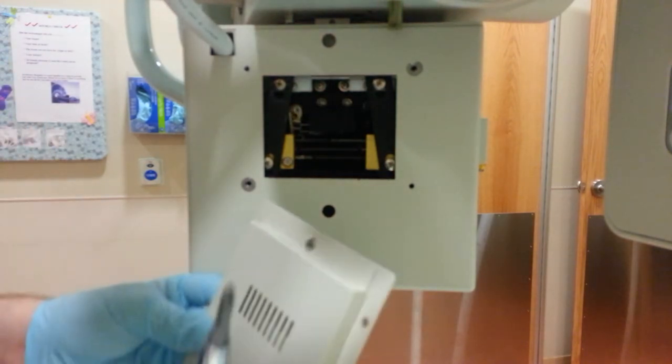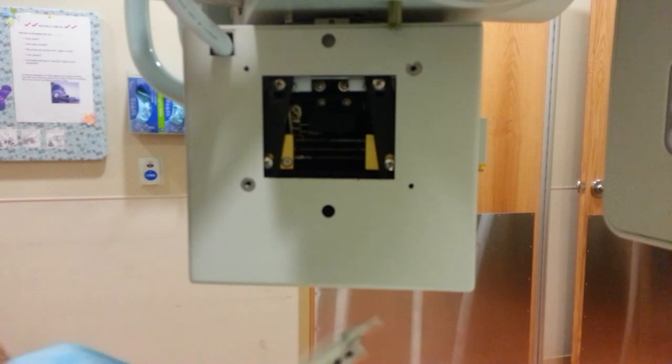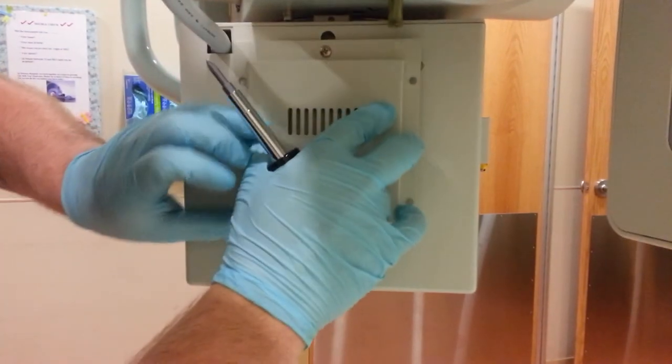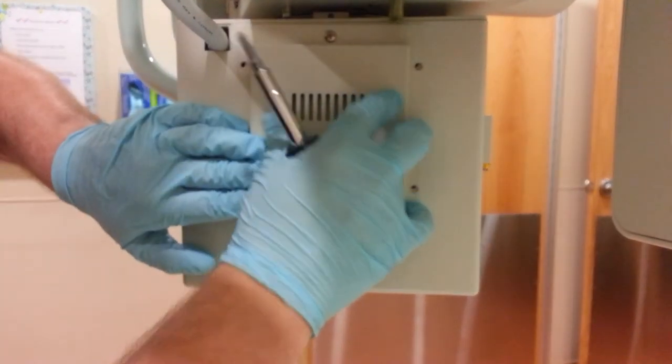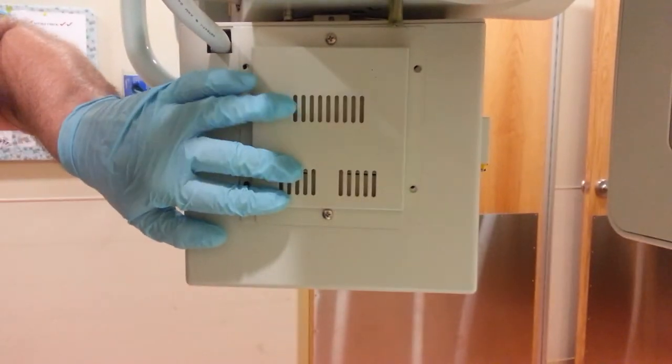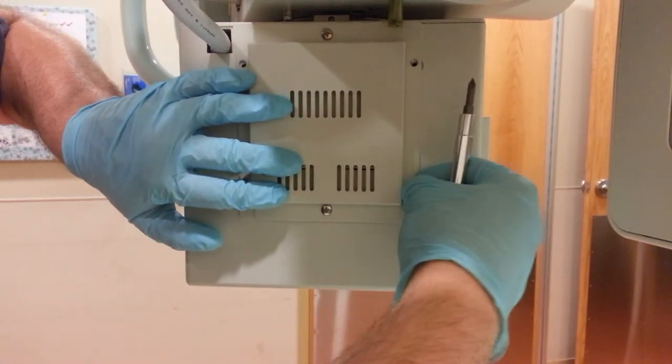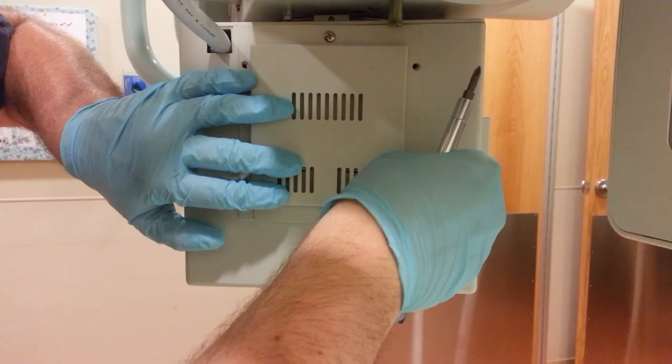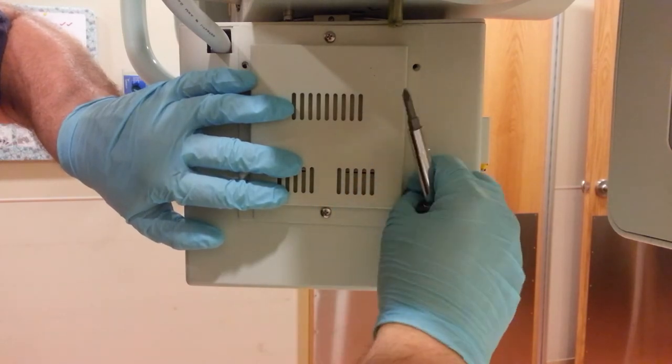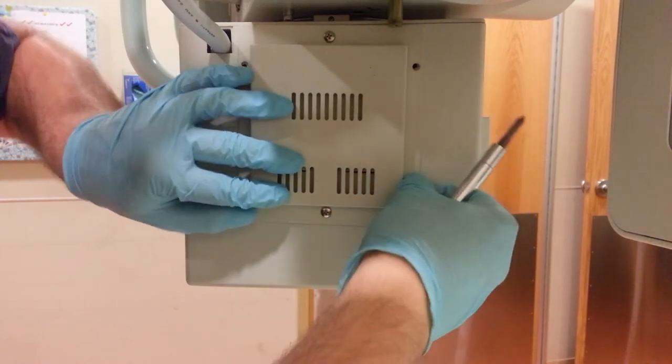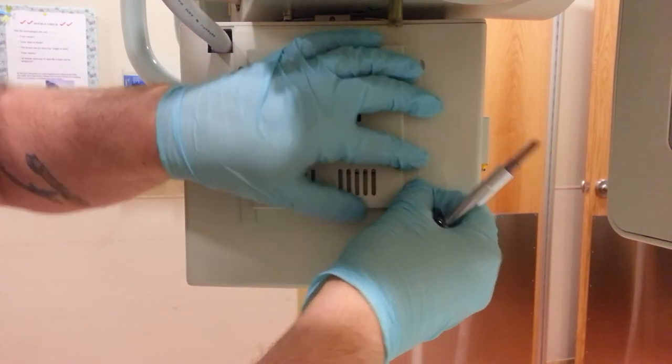And then we'll go ahead and put the housing back on here. Housing cover back on. Of course, using gloves makes this harder than it has to be.